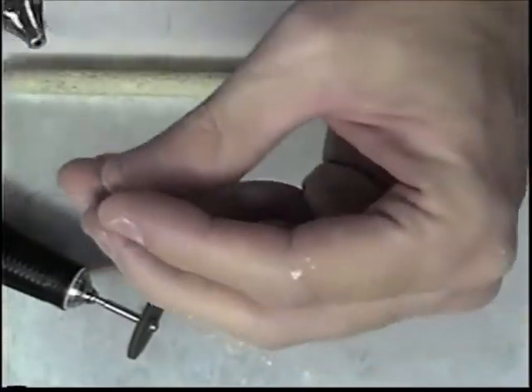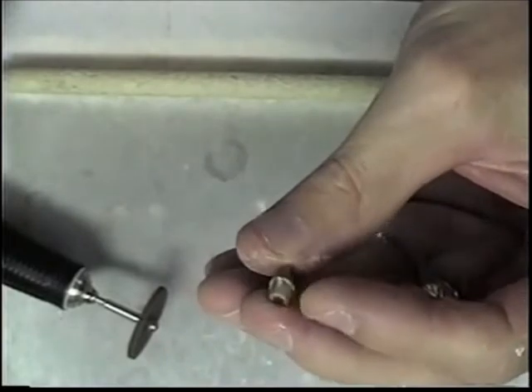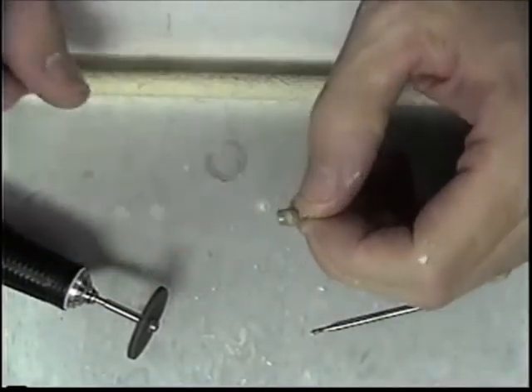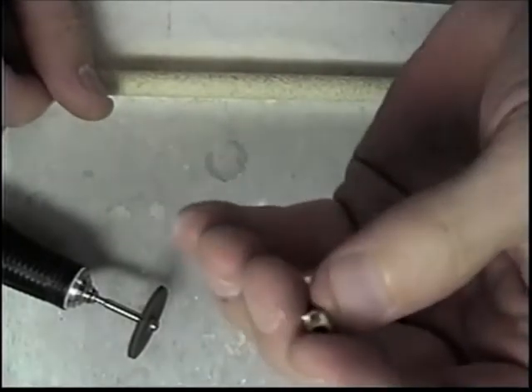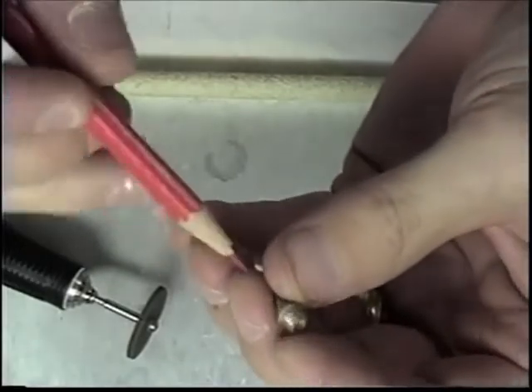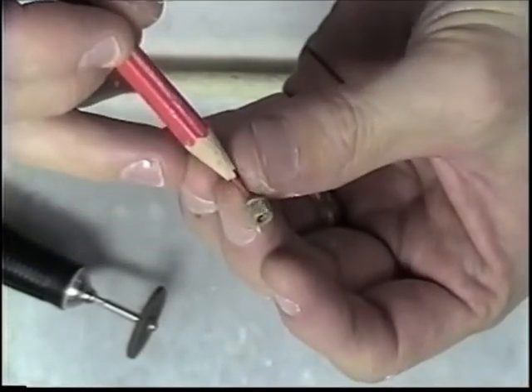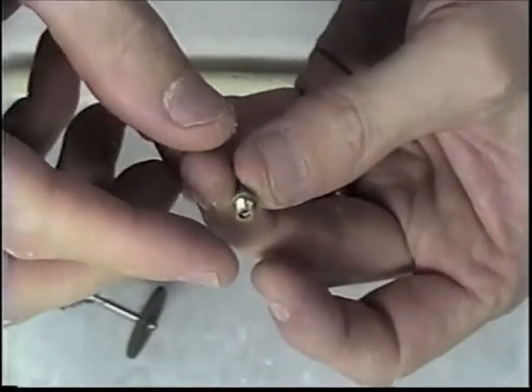The first thing I really want to do now, before I do any shaping or designing of this abutment, is I want to put it back onto the die with the soft tissue intact and find where it fits. Because I've flowed the wax and created somewhat of a margin here already, I will get a good idea of how it seats into the tissue area.